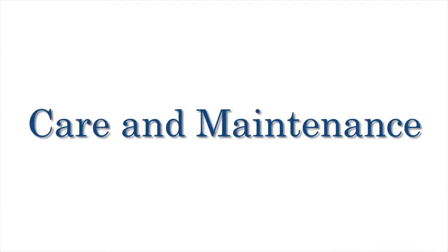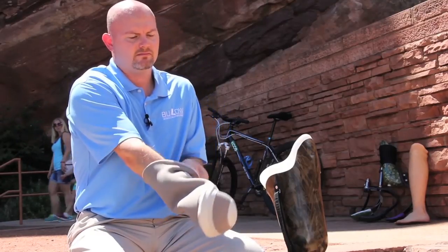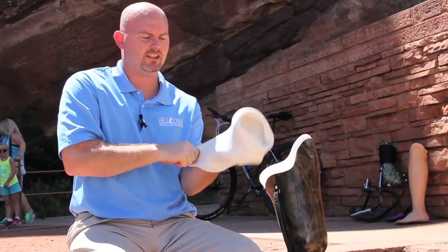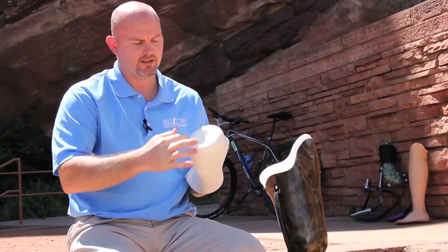Care and maintenance. Since some liners tend to absorb bodily odors and perspiration, the wearer must keep the liner clean. Proper hygienic protocol can also reduce the chance of skin irritation. First, invert or turn the liner inside out so that the gel is exposed. Check the liner for signs of damage — sometimes there is cracking around the ring.